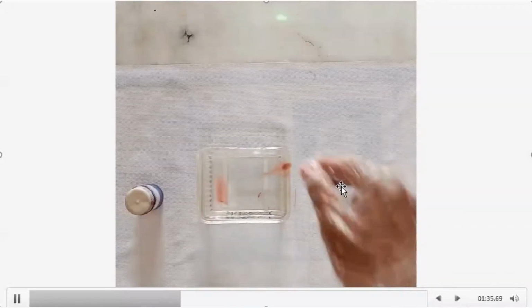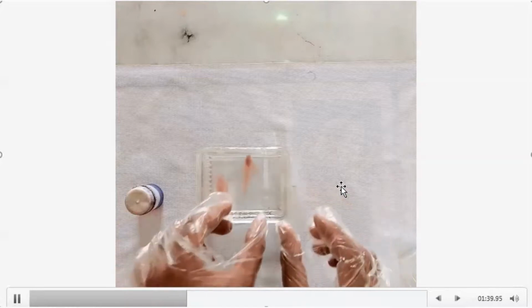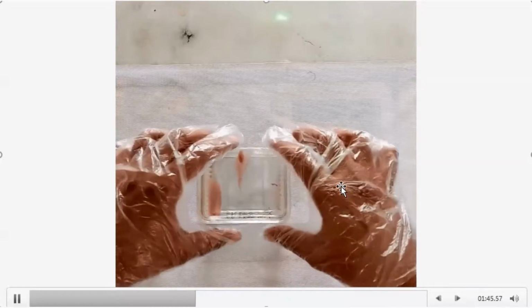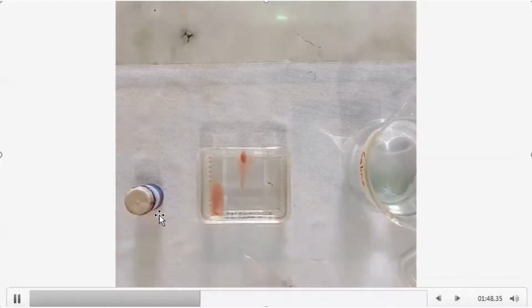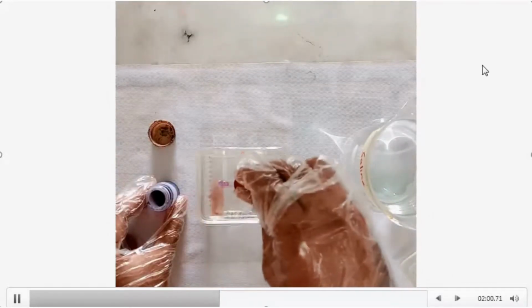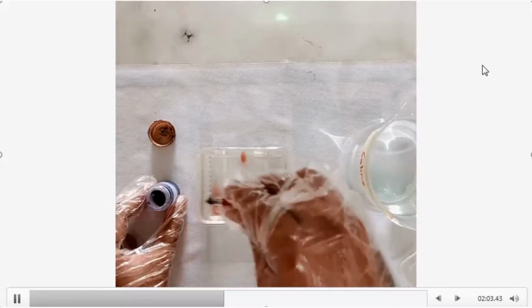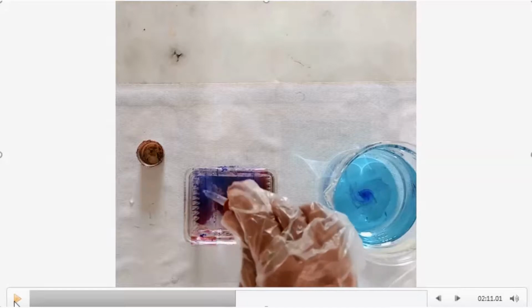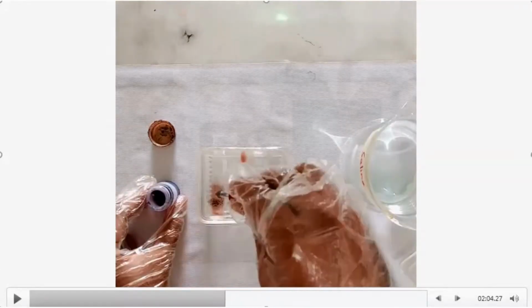After drying, now we are going to put these slides on the staining jar in horizontal position and apply the Leishman stain. Leishman stain is purple in color when it is non-ionized, and when we add water it becomes pinkish. We have to add 10 to 12 drops of the stain in order to cover the smear on the slides. Methyl alcohol in the stain fixes blood on the glass slides and prevents washing out of the blood when we proceed through steps of washing.